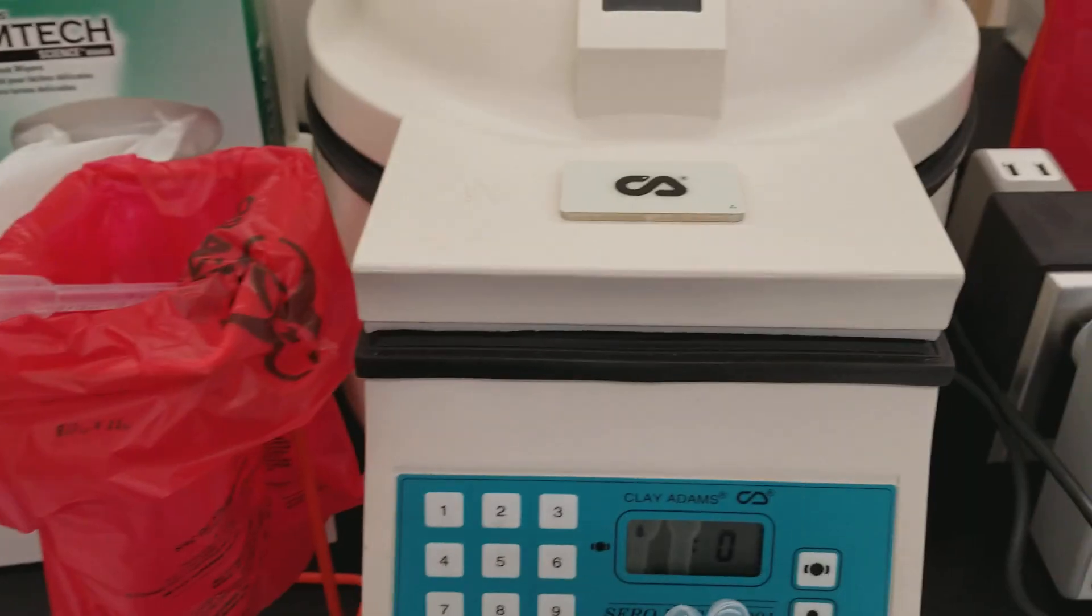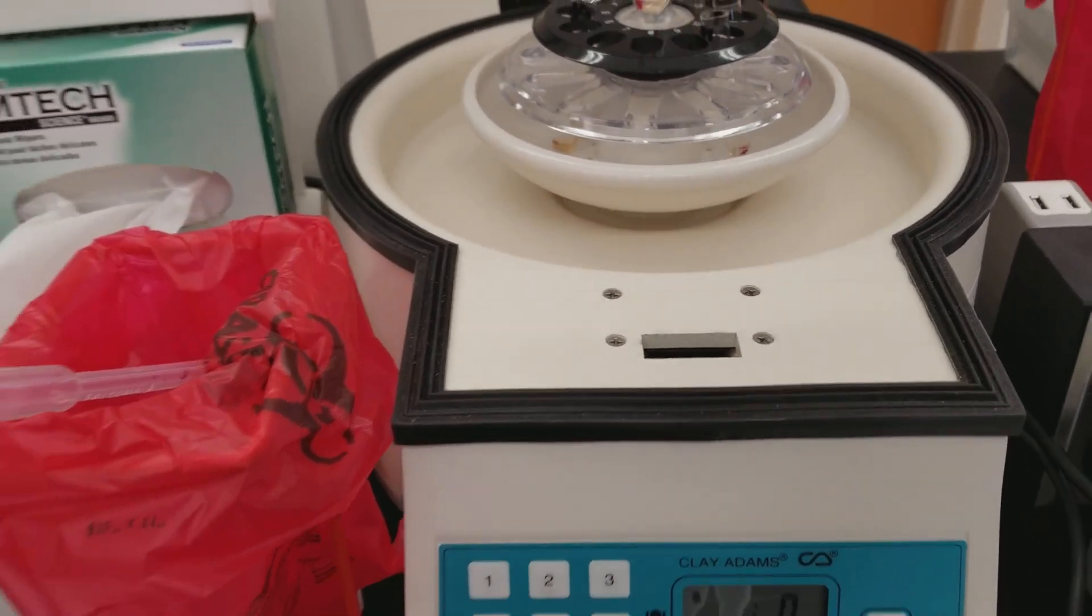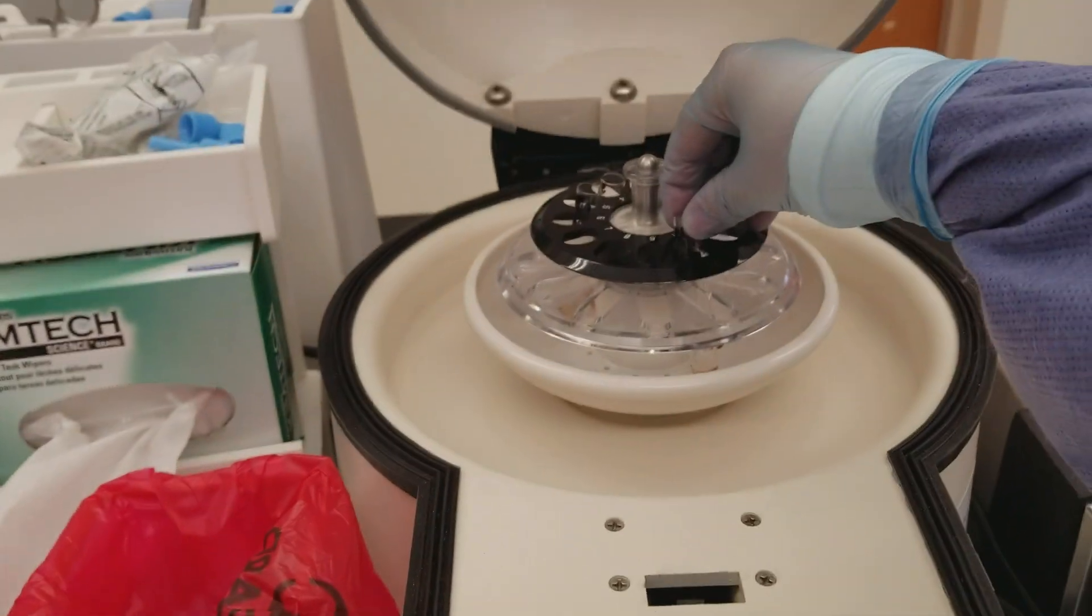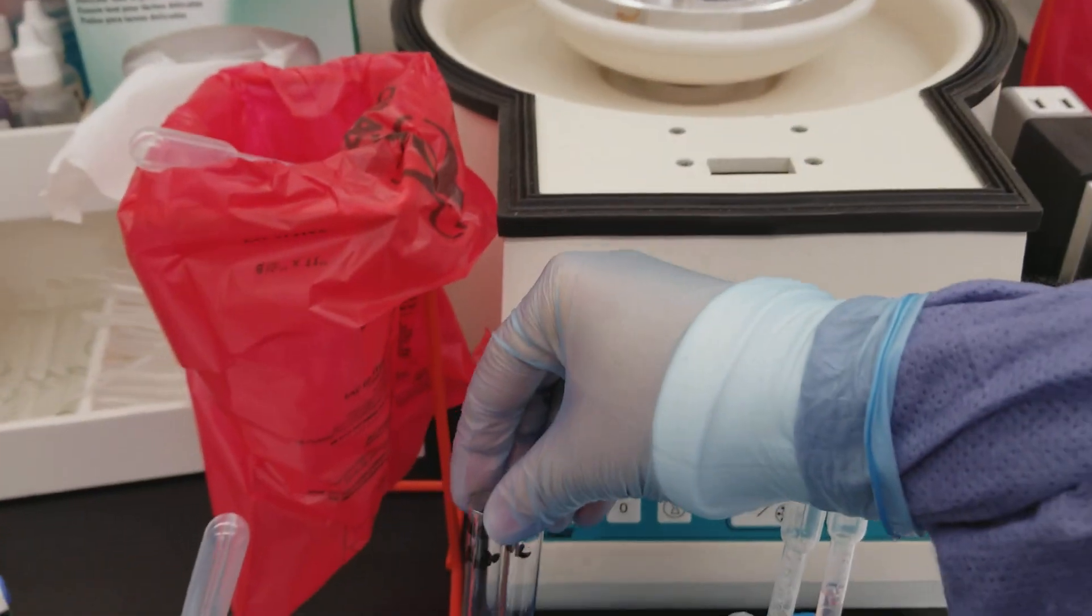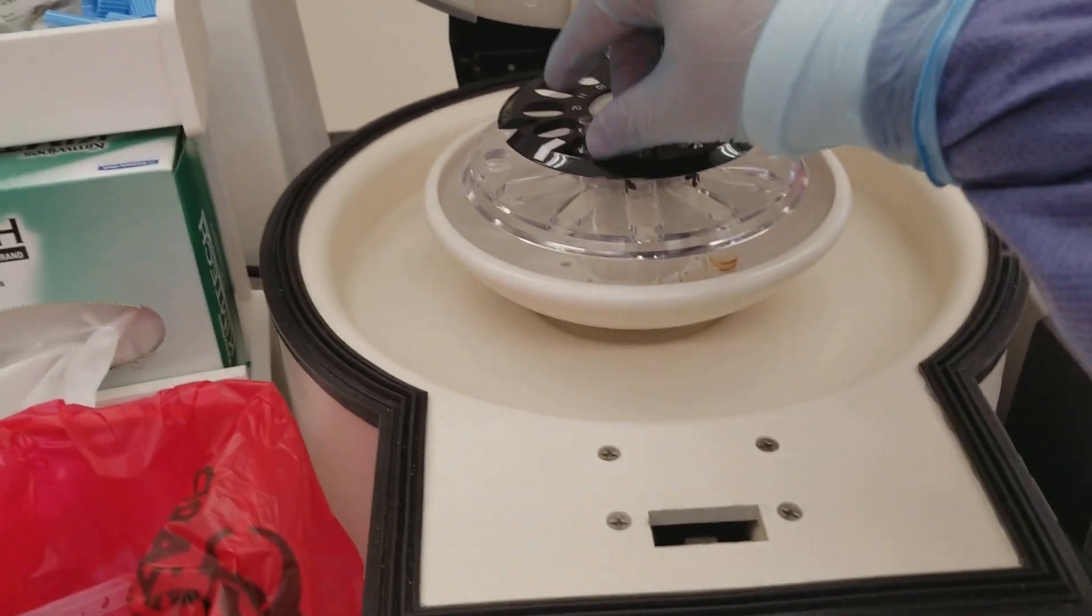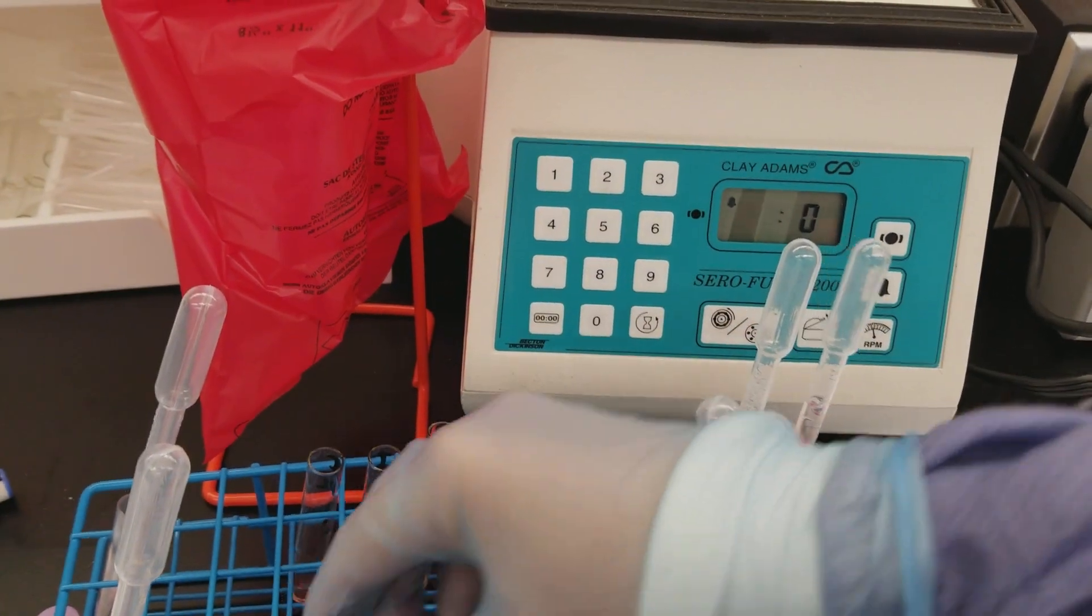All right, so we're taking these out now. This is the patient in the back that's supposed to be the positive patient. This is supposed to be the negative patient.